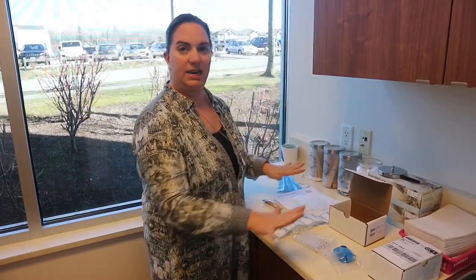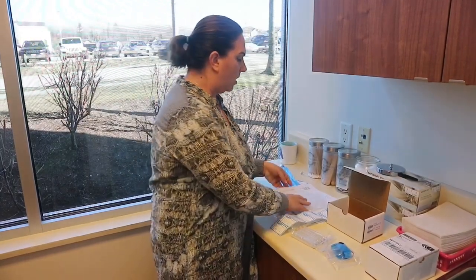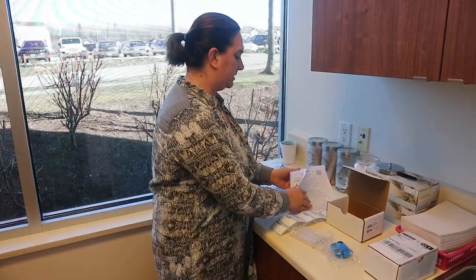When I do the test I like to lay everything out so I know I have everything, and then I can start the test. First, make sure that the day before the test — and even two days before if you are slightly sensitive — you want to be making sure that you follow the proper diet. It is all listed in the prep diet sample.